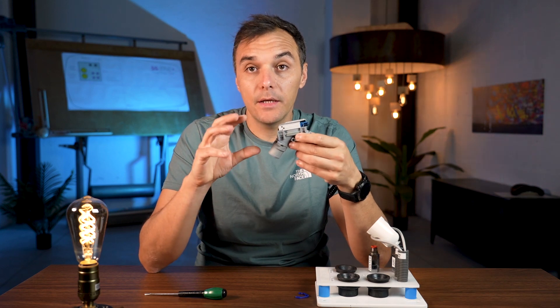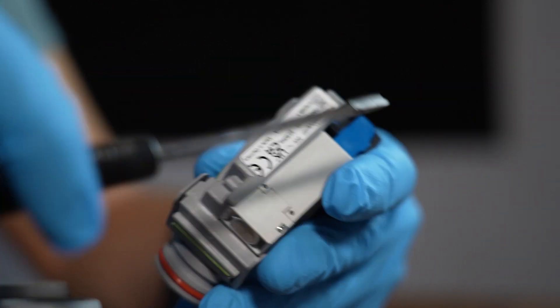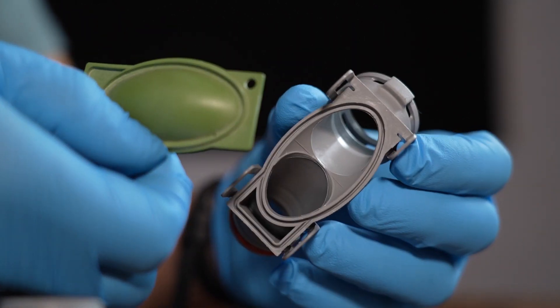For maintenance, there are a couple of important things to do. First, keep all the internal suction tubing of the dental chair clean, to avoid dirty residue like blood and bacteria remaining inside — this prevents bad smells and keeps all valves clean and safe. Second, check once per year or every two years the membrane inside the selection valve. You can open the valve, inspect the membrane, clean it, and replace it if in bad condition. It costs just a few euros but it's a good practice to do at least annually.